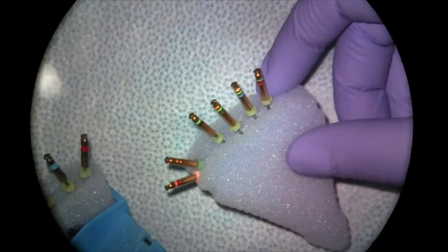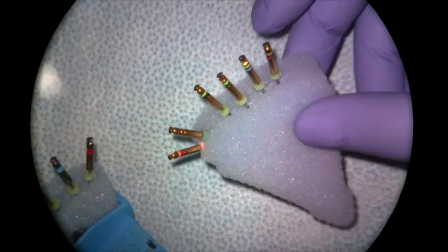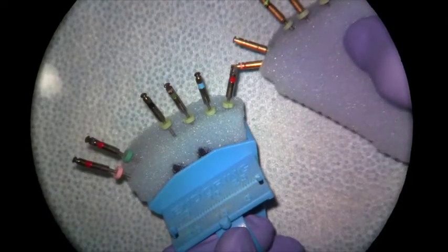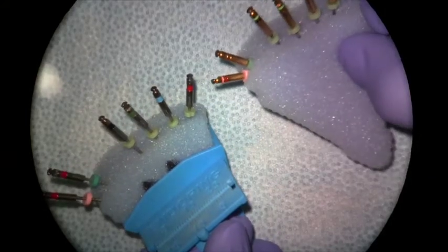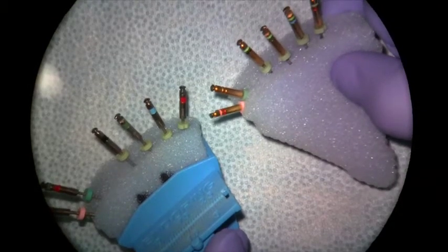The K3XF files are heat treated for more flexibility, and the K3s have a little bit different handle. It's a gold handle with two lines on it, versus the K3XF which is a silver handle with one line on it. I just want to explain a little bit about how you set them up in the same way and tell which file is which.